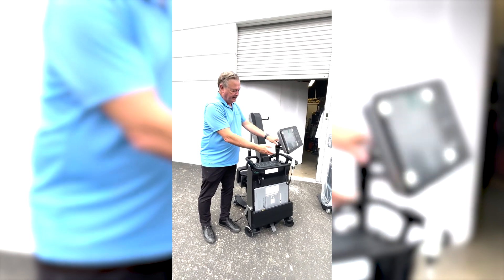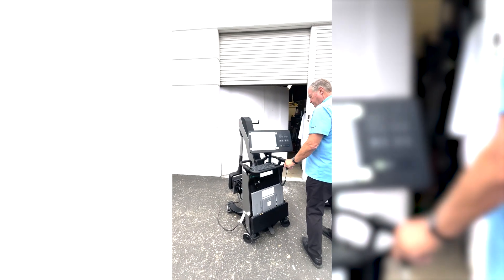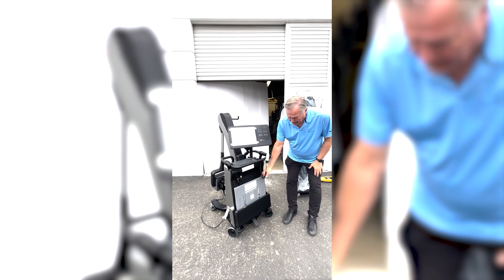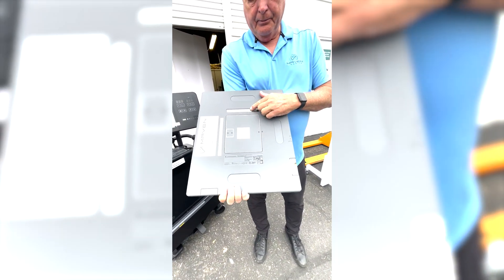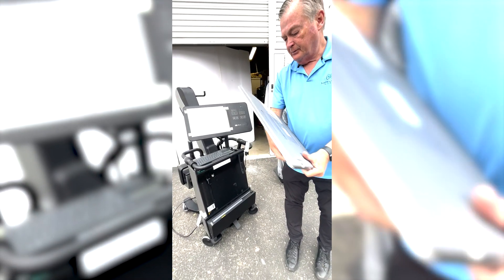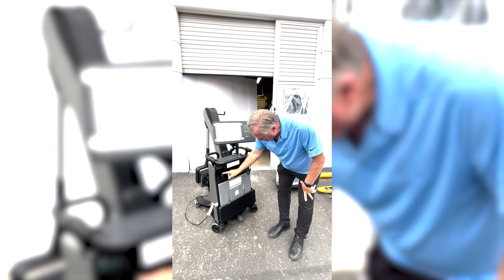You can adjust the head and rotate it. We also supply a wireless keyboard. We have the trigger switch here, and we also have the wireless DR panel — you can take it out like this. We have a set of three batteries and a power indicator. We also have the locking station, or docking station as we call it. When you put it in, you put it down in there and you can lock and dock it.